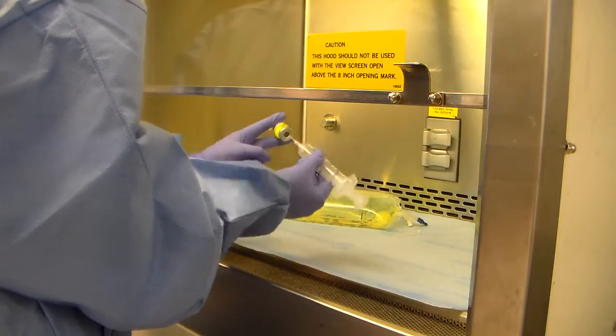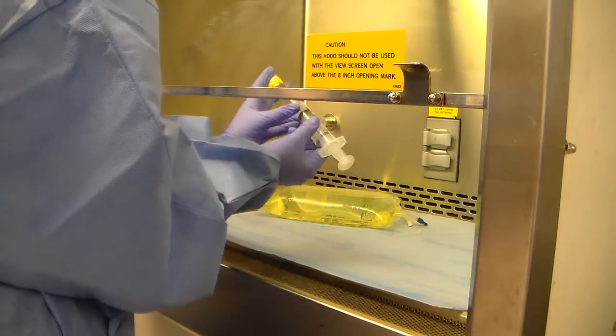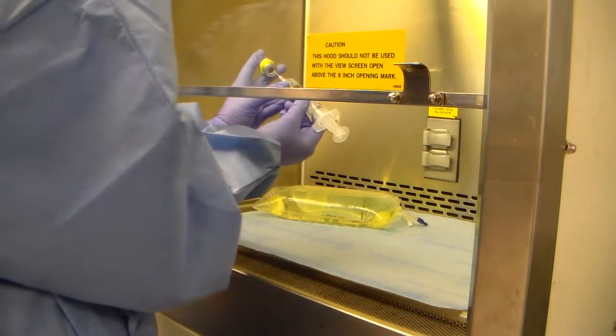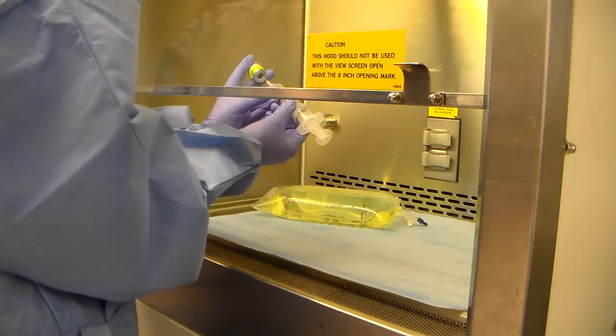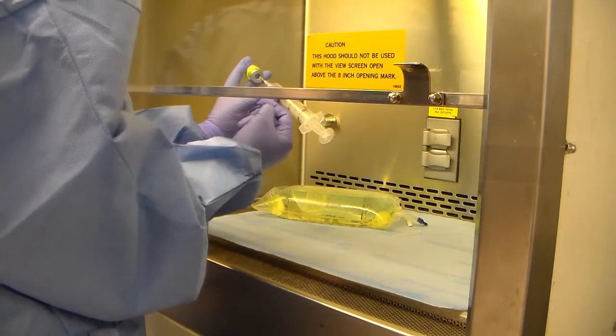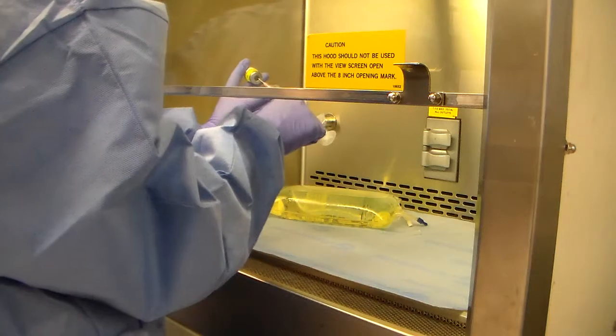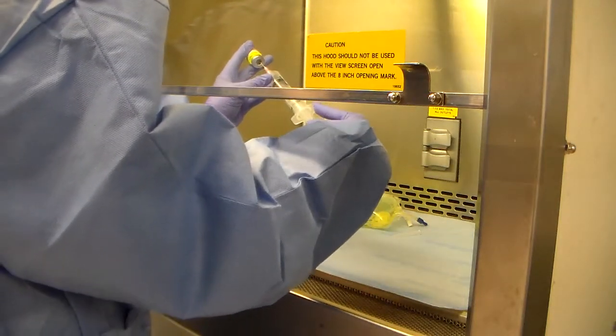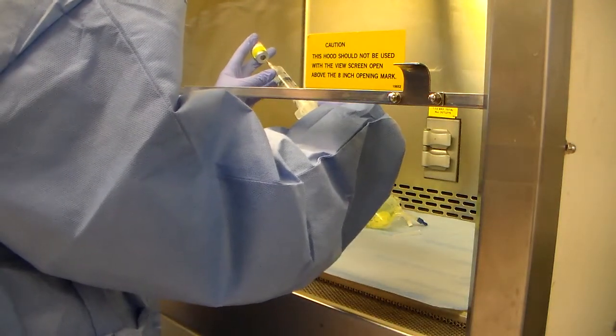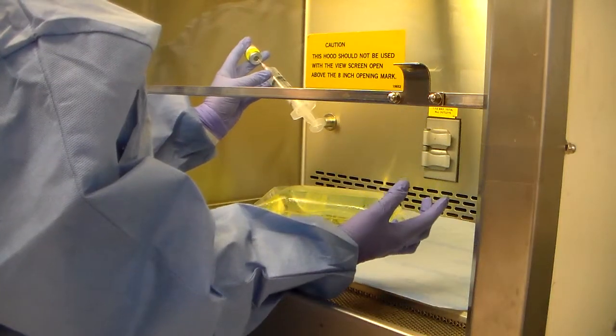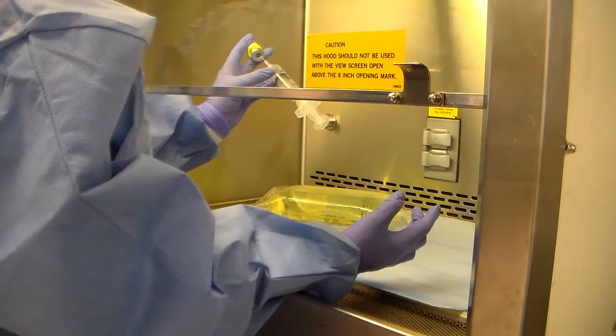And now I'm not going to flip it all the way up. Now I'm going to flip it at this angle here. And we do that because my airflow is no longer coming from the back towards me. It's coming from the top down. So now I'm going to pull on the plunger and let go. That's what we call negative pressure.